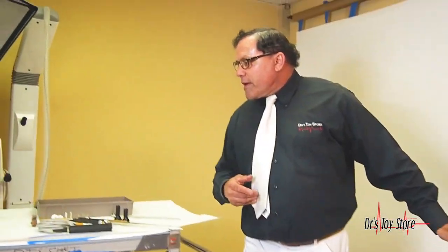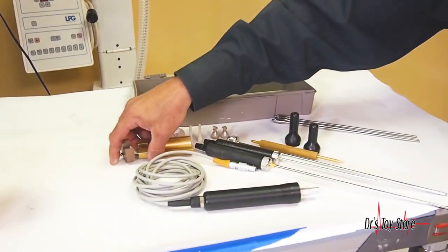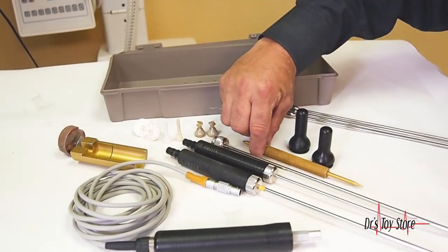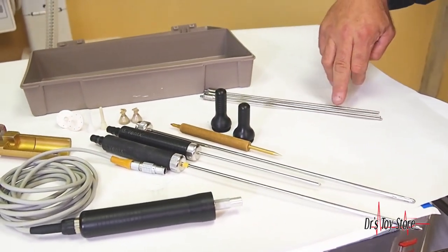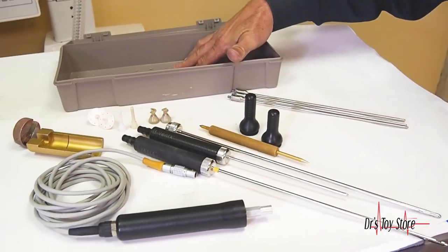If you come over here closer, you'll see it comes with two hand pieces — one's over here to demonstrate it. It comes with a lock and key, skin ports, infiltration cannulas, the skin piercing device, the nose cones, and three tips: you get the single, the double, and the triple, and the autoclavable case.